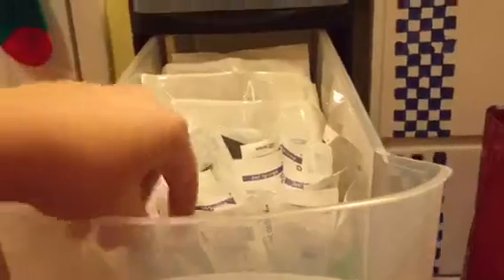This drawer is probably my favorite — this is my cartridge drawer. Back here I have the physical T-Slim insulin pump cartridges; I think there are three boxes in this drawer. In this little container I have syringes standing up, and then in this little box — it was the bottom of a Cheez-It box that I duct-taped to match the grain of the other ones — I have the needles that attach to the cartridges. The cartridges are three pieces: you put the insulin in one of these syringes with the needle on the end and then you fill the cartridge.